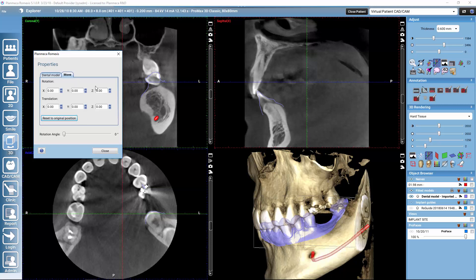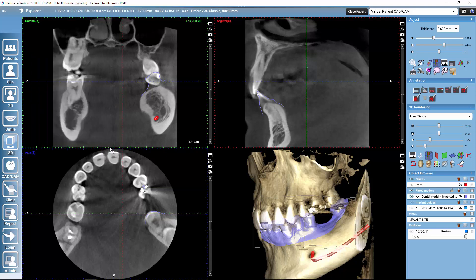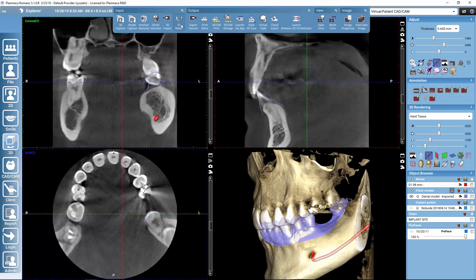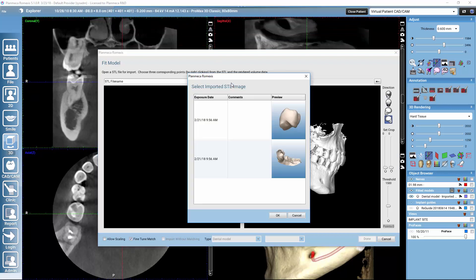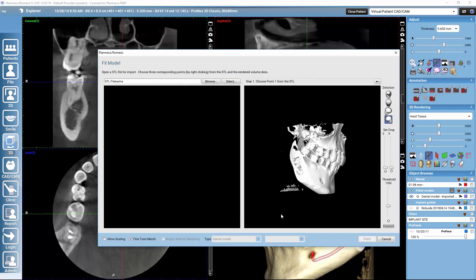In the move tab you also see rotation and translation buttons, which you may use for very minimal adjustments to the intraoral scan position. After that, remember to lock the intraoral scan again so that you don't move it by mistake. Then we are ready to bring in also the restoration design — that happens with the same fit model tool. We go back to the upper toolbar and select the crown design.